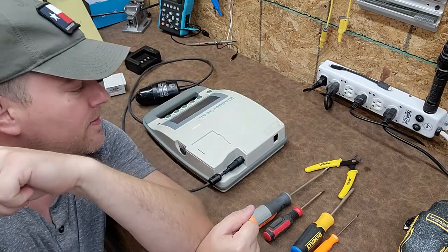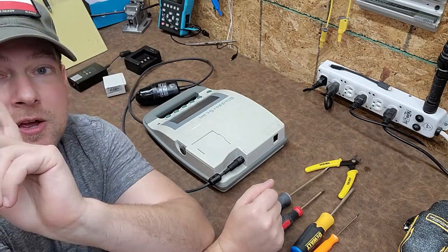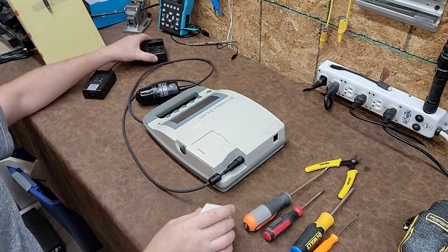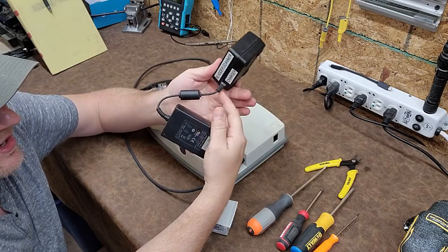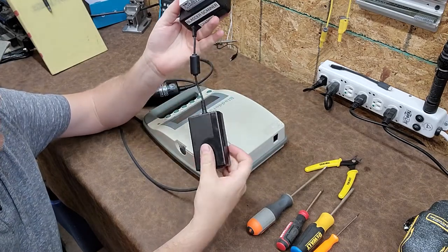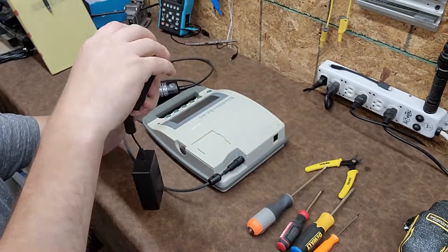Quite frankly I don't exactly know what's inside one of these — we never actually repair these, we always ship them back to the OEM, and that was always a bad solution because those are very expensive repairs. I have a Verathon bladder scanner and a battery pack which is charged using this interesting little charger. One of the first design mistakes is that this is a very expensive charger because they didn't use a barrel jack — it's actually hardwired. You can see from one side to the other it is hardwired, and that means if anything happens to this cable you are just done.